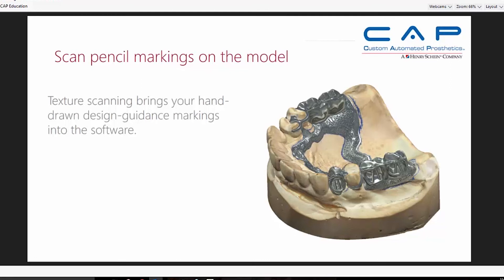If you take a look at the back of this partial denture in the palate area, you can see that the partial followed the blue lines, and you can see blue lines below the saddle area where two molars have been cut out for layering of acrylic. This works really well for maximizing the productivity of your more highly skilled technicians. You merge the two technologies via the scanner and the software.